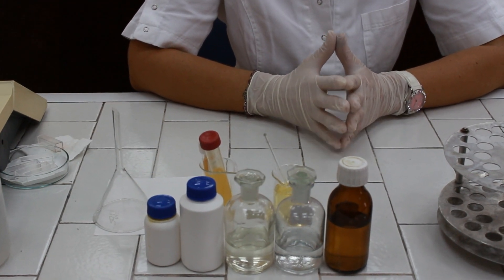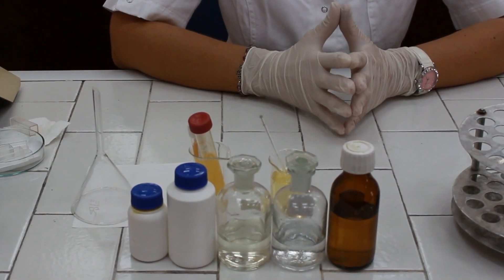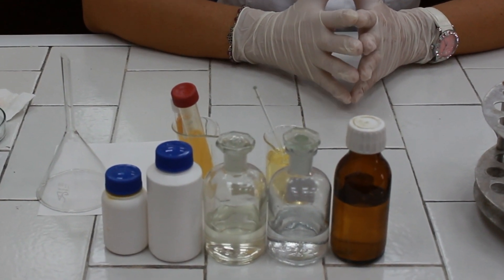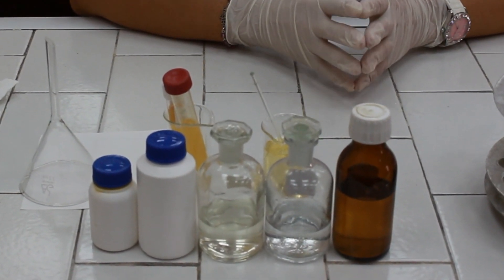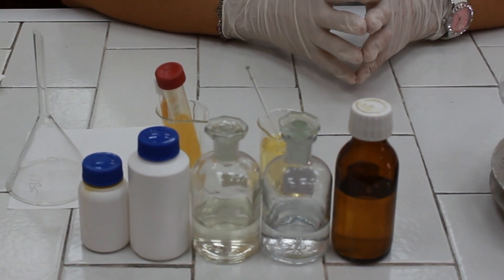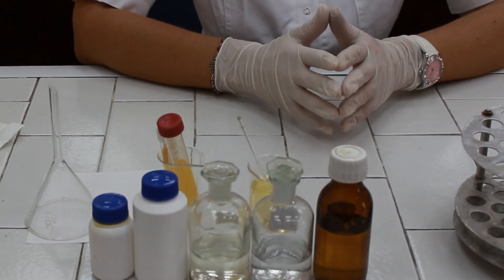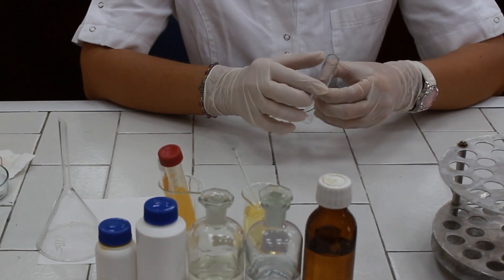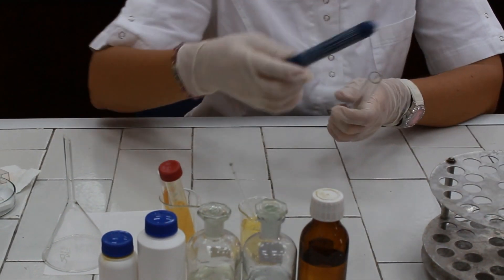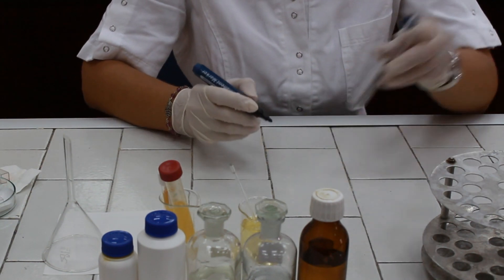Determination of the presence of direct bilirubin in serum is accomplished by performing the so-called direct diazo reaction. For this reaction we need to prepare diazo reagent, because only freshly prepared reagent can be used for these so-called Van den Berg reactions. For preparation of diazo reagent we are going to take one test tube and mark it as R for reagent.